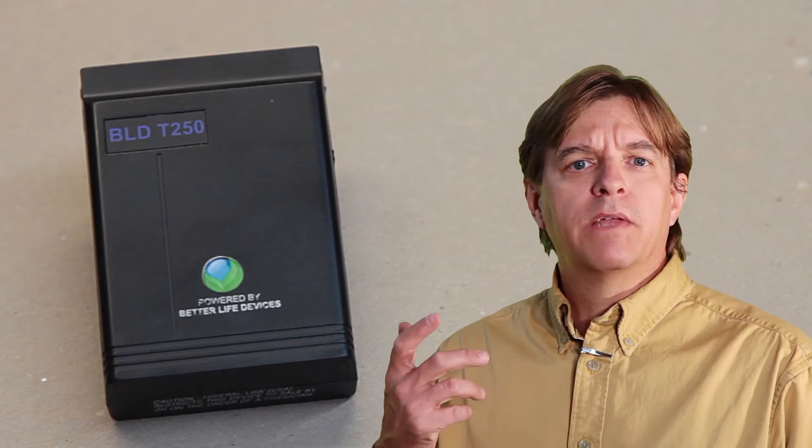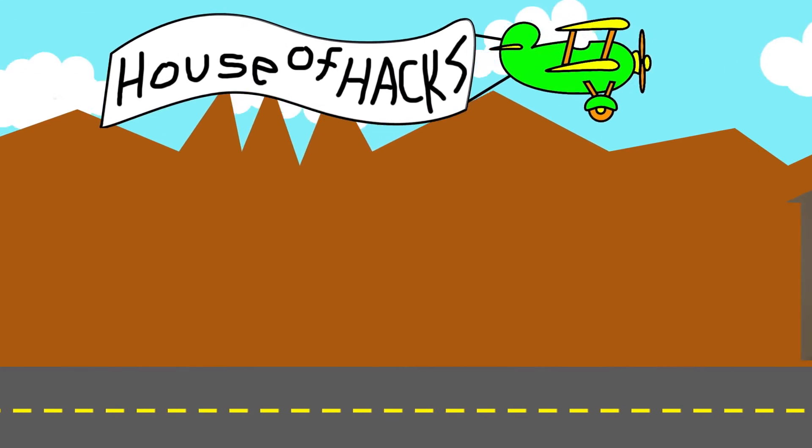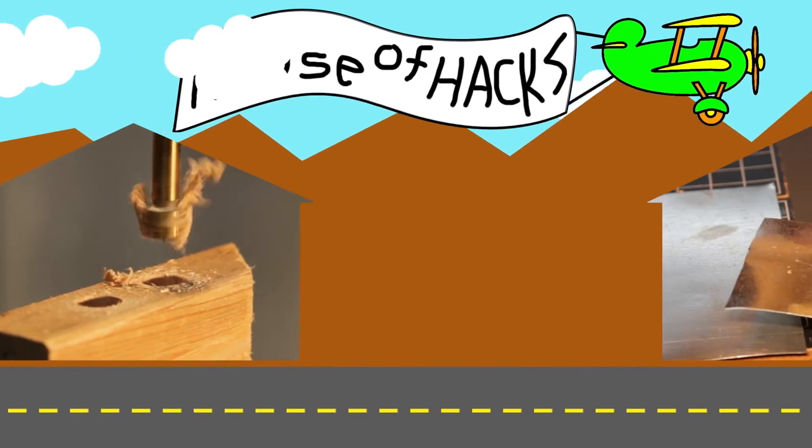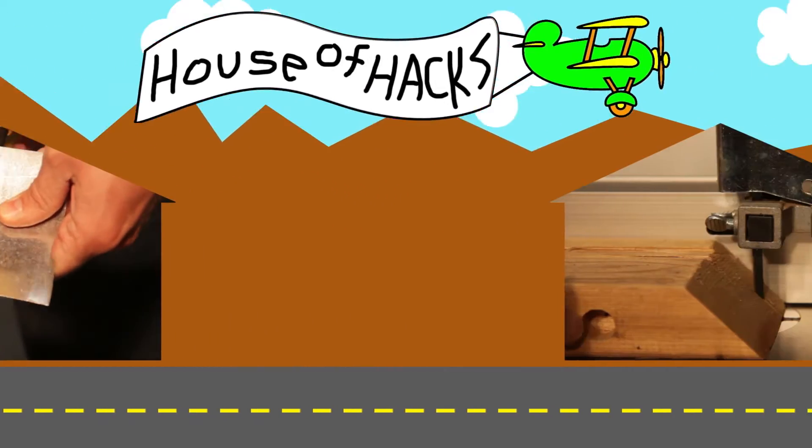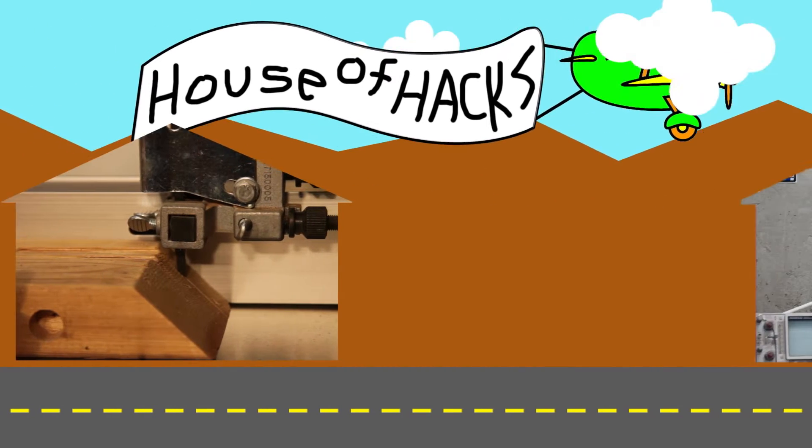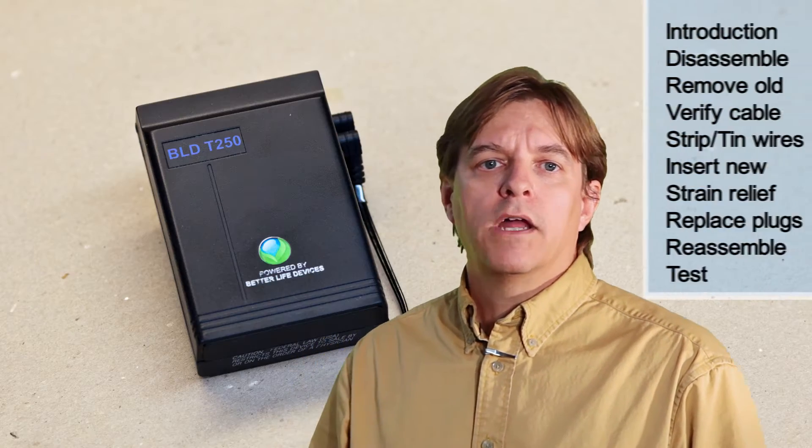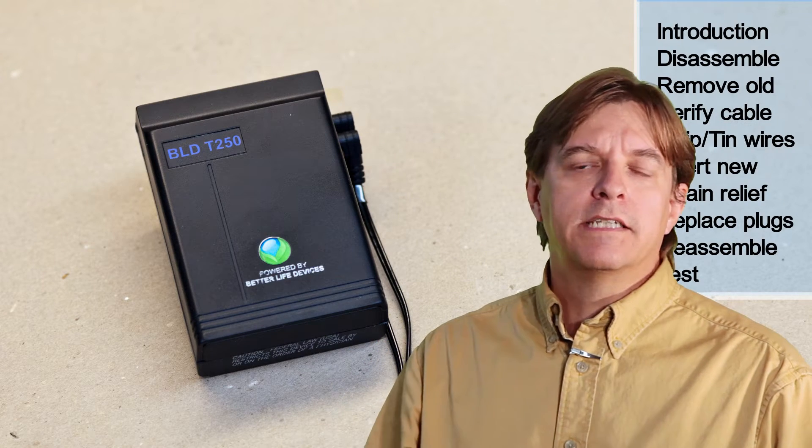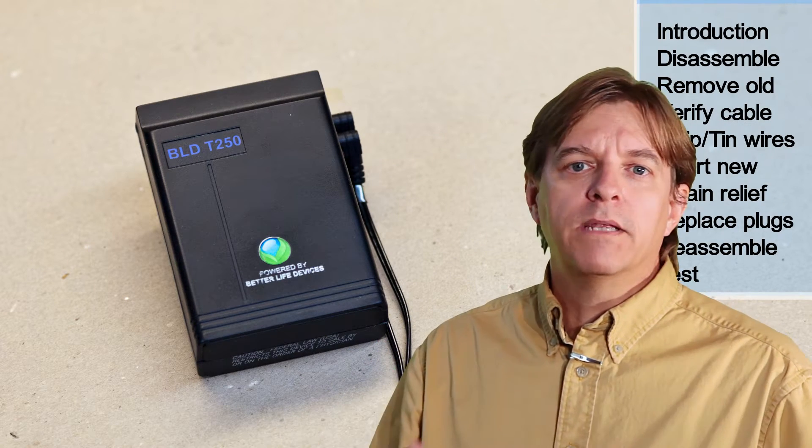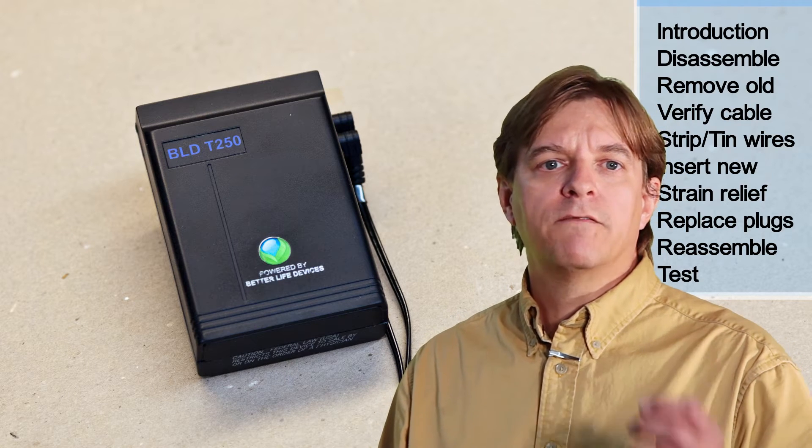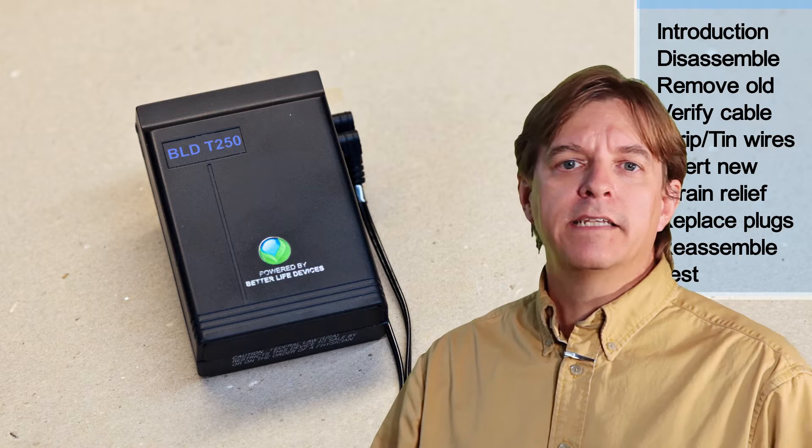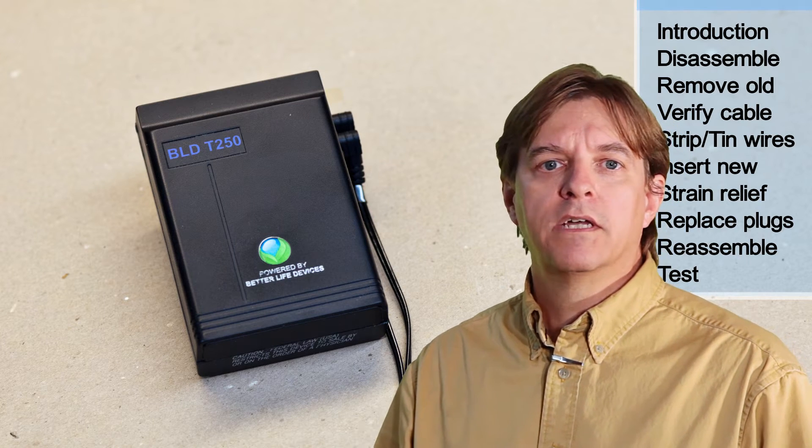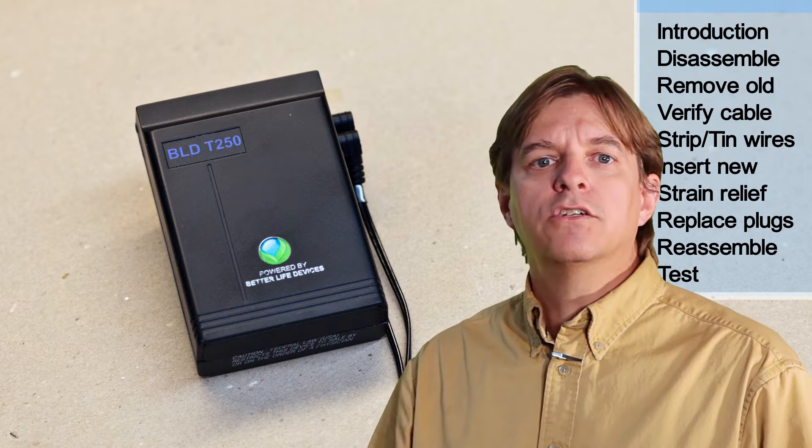This medical device is going to get an upgrade today at the House of Hacks. My wife has chronic back issues and the other week had a big flare-up. The chiropractor showed us a home electronic stimulation unit that he was willing to sell us at a very steep discount because he wasn't terribly impressed with their reliability. He said they worked fine as long as they worked, but reportedly they had a tendency to develop intermittent faults and then fail altogether.